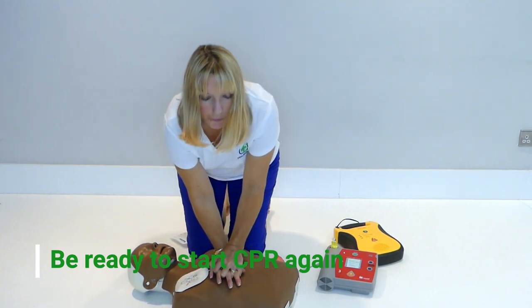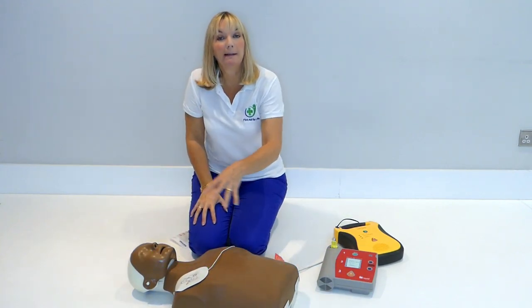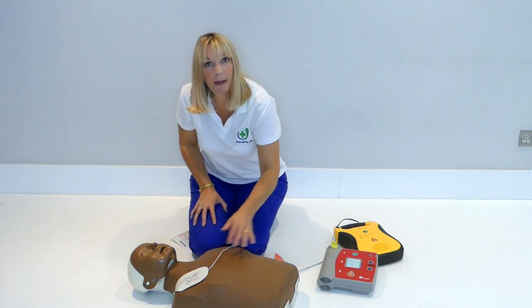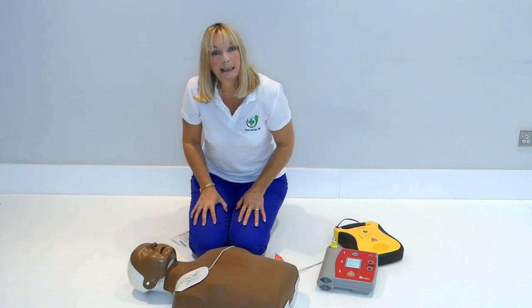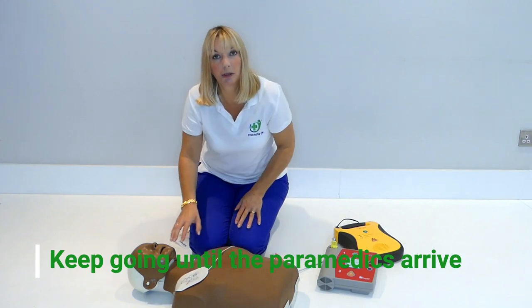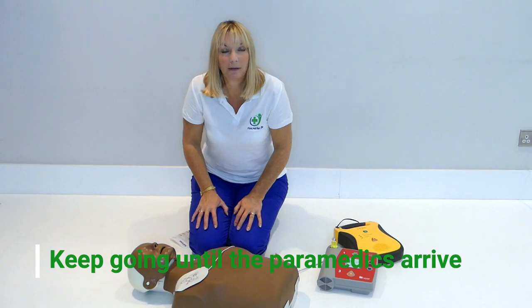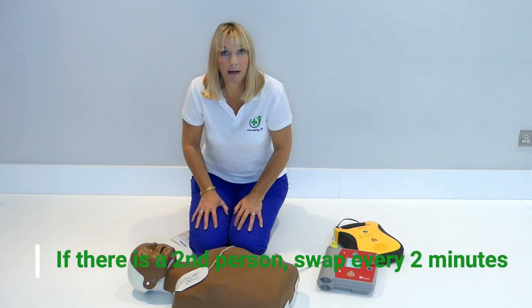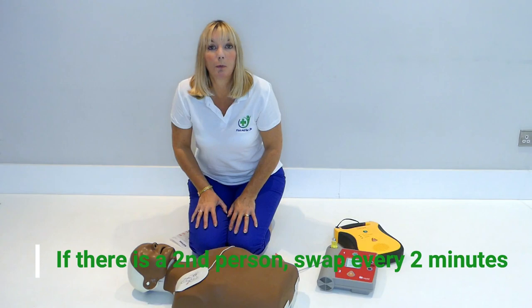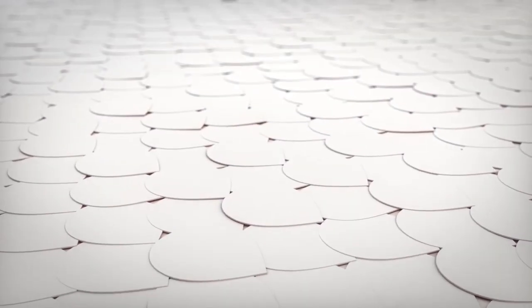It's really important that you are giving CPR and then following the prompts. Leave the pads in place and it will tell you what to do. Keep doing quality CPR — 30 compressions to two breaths — and keep going until the emergency services arrive. If there's a second person, you can swap over every two minutes.